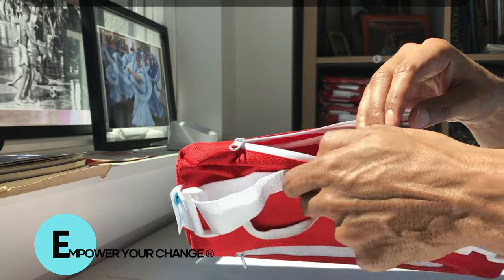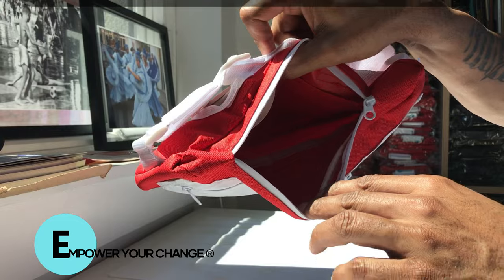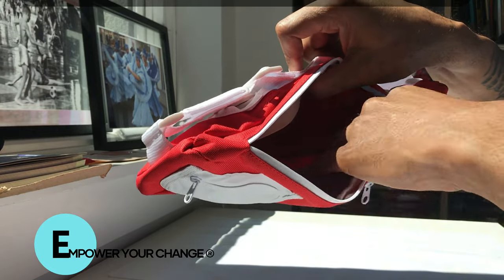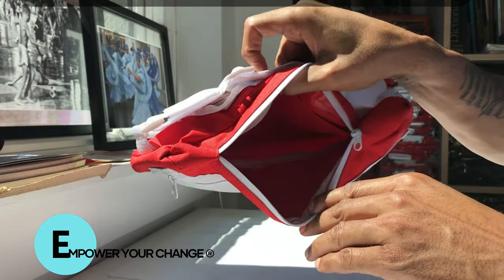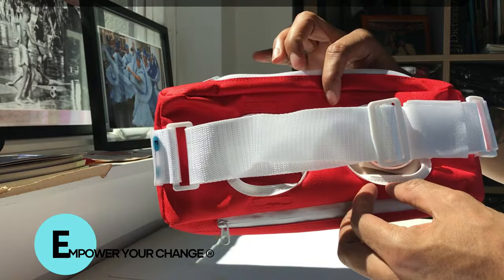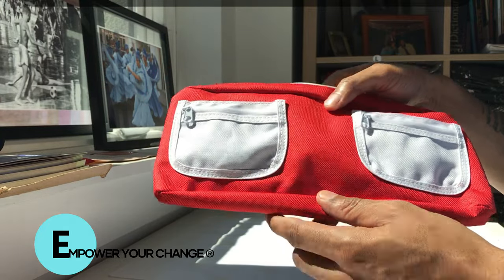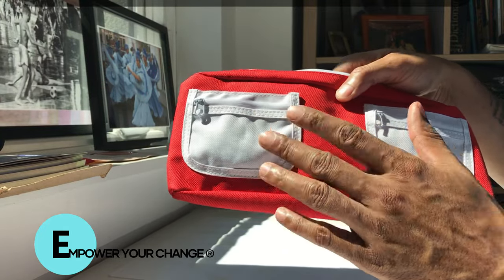We also designed it with another big pocket inside where you can put other large items you wish to carry. It's a pretty sleek design — no one really knows if you have an ostomy bag; it just looks really fancy. This comes in white, red and white, and also black.